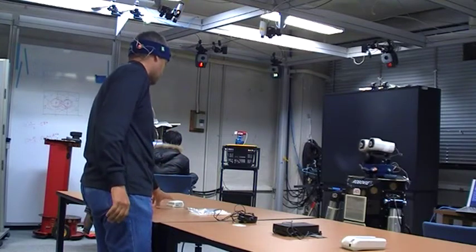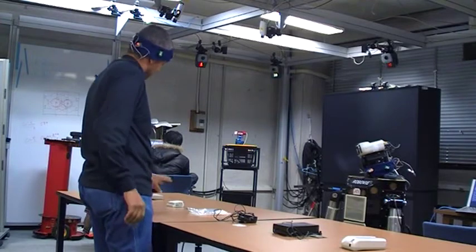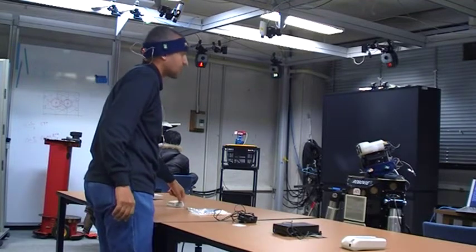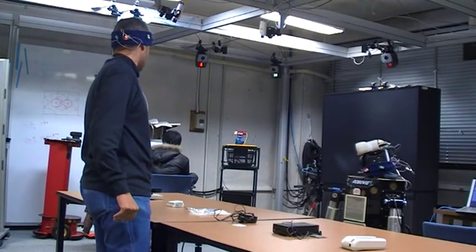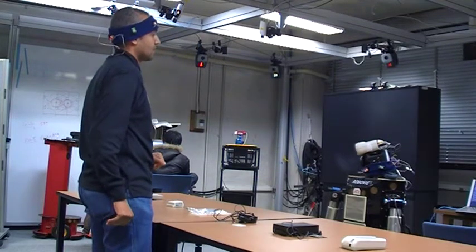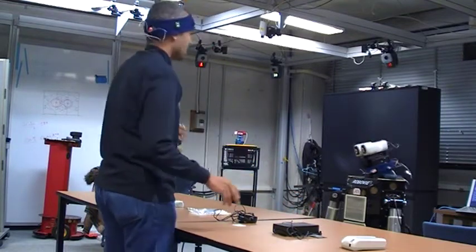This is about the EEG device. I'm not explaining details here, but you have to connect different parts to the main device. The same applies when you measure the skin conductance using this skin conductance device. In both cases, you need to connect it to the main device so you can get information.